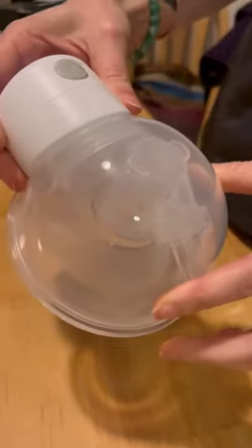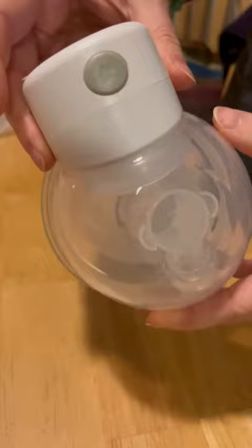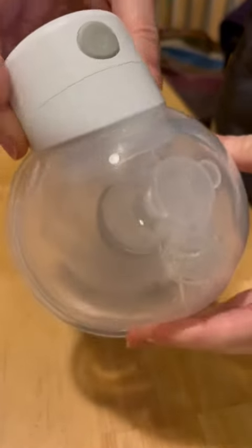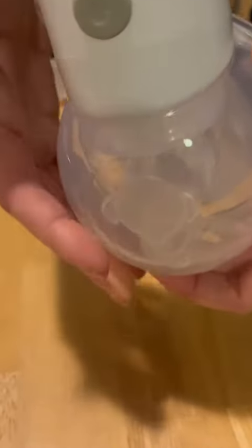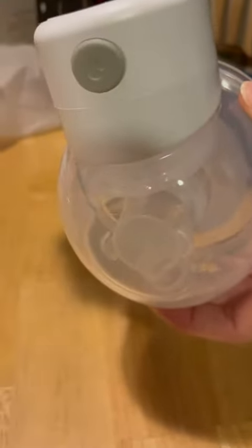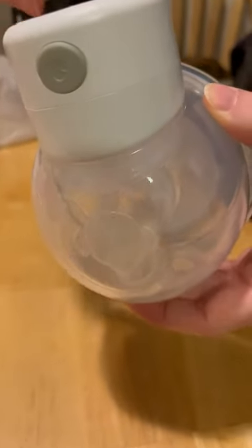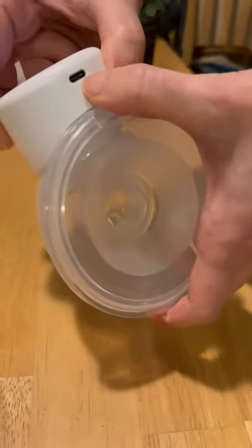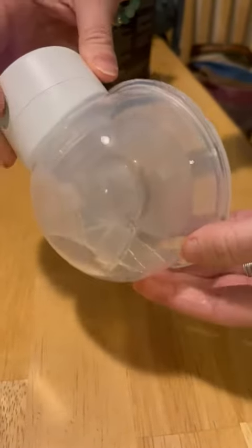This is amazing — this tiny little breast pump. And of course there are two of them. Listen to how quiet it is. It's really easy to use; it's meant to stick into your bra so the bra holds it up, and there's a little extension for your bra strap so it doesn't stretch out your bra. It has good directions, a good charger — the charging cable goes right in here. It looks really easy to use.